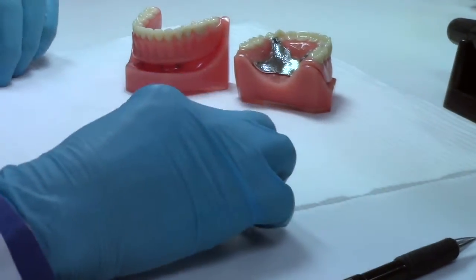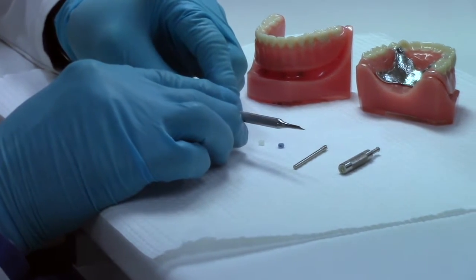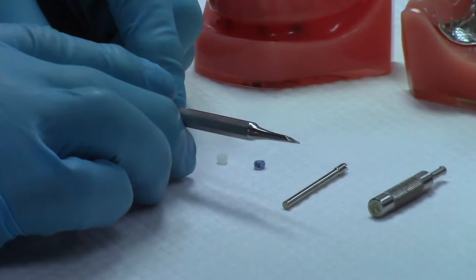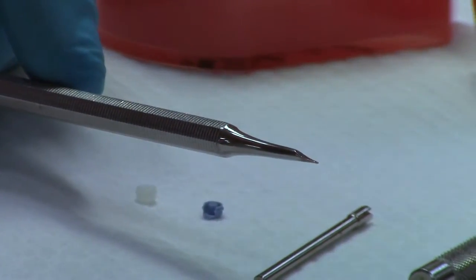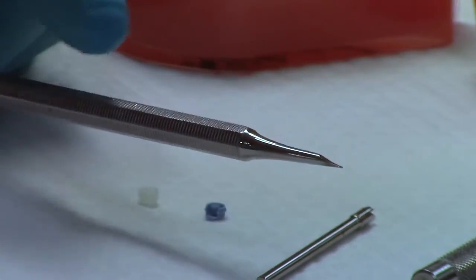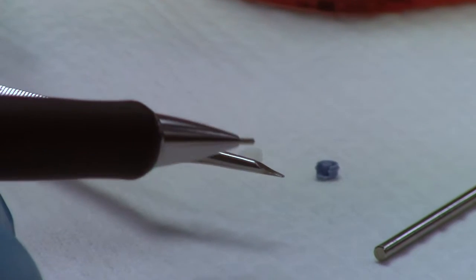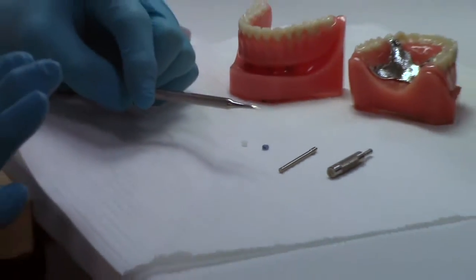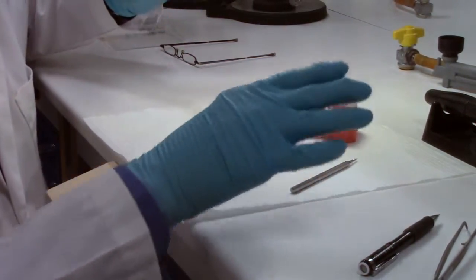The other tool that I have here is an extraction tool. This bears probably a good resemblance to a scaler, an old broken scaler that we've modified. What we've done on the end here is we've sculpted the end a little bit. It's scooped out a little bit and down to a rather thin blade. And so if you don't want to modify your own broken scaler that you have laying around, we do sell these as well. So those are the tools that you need.